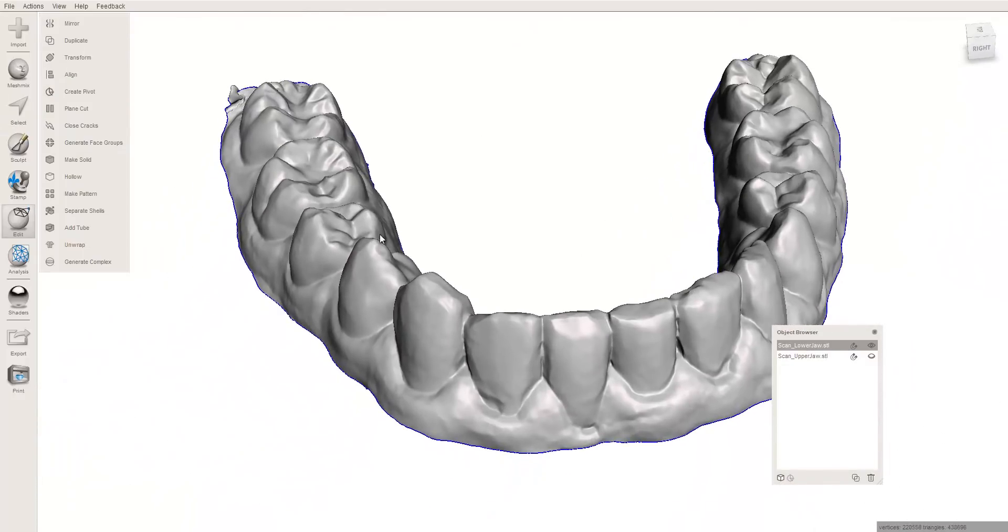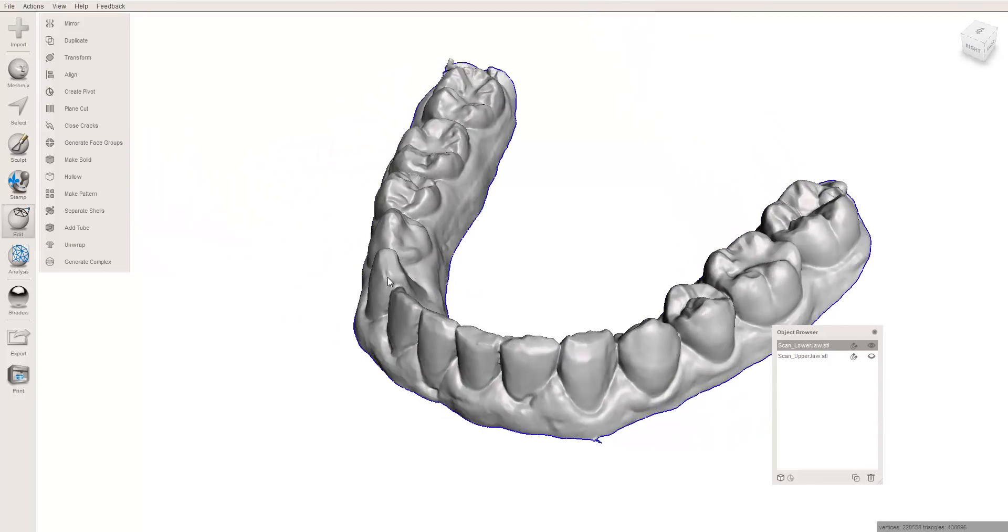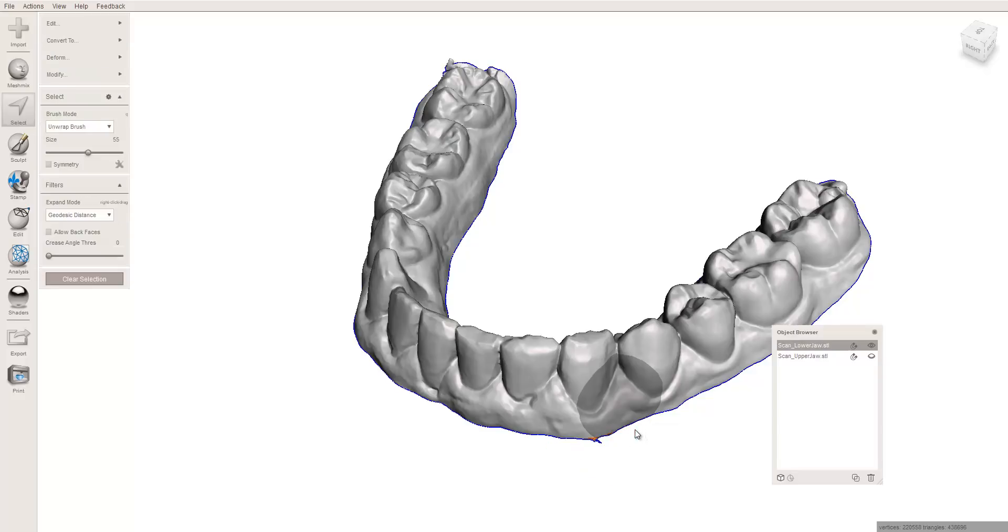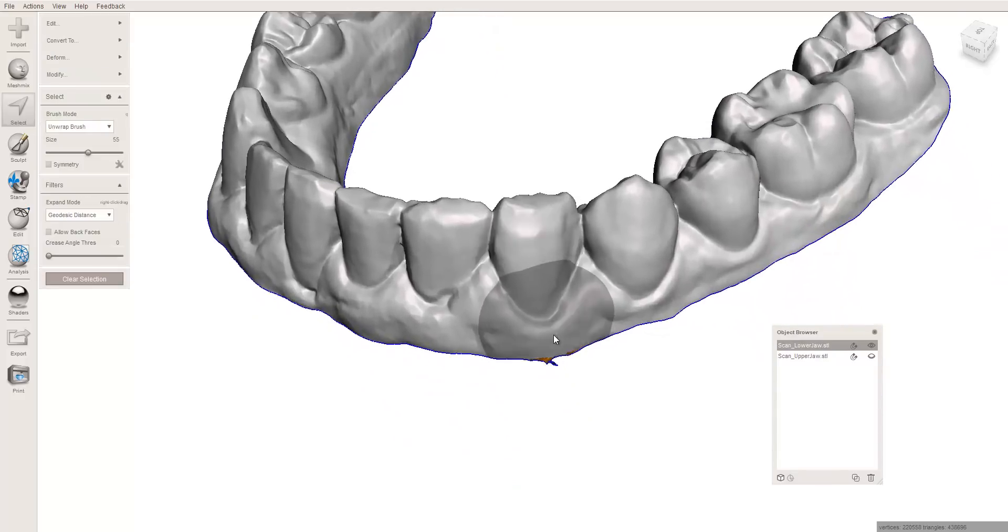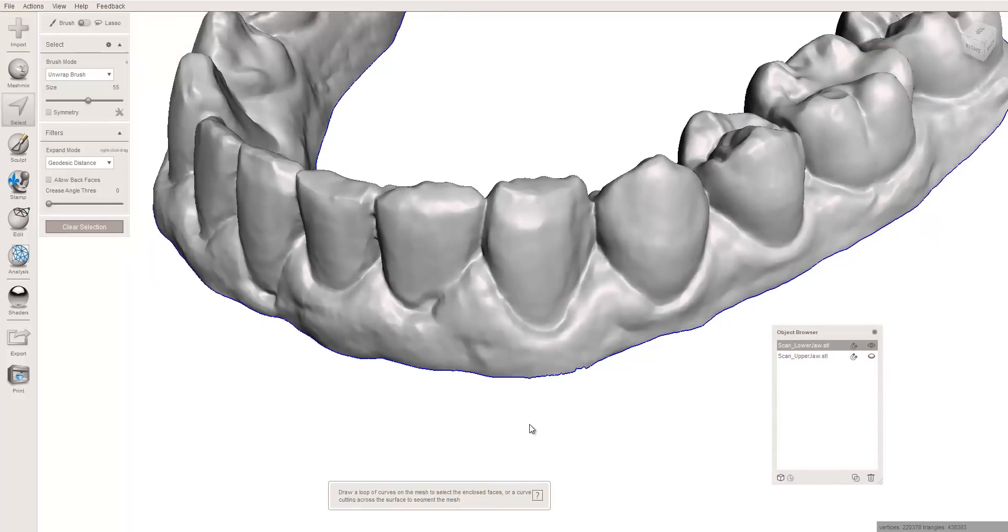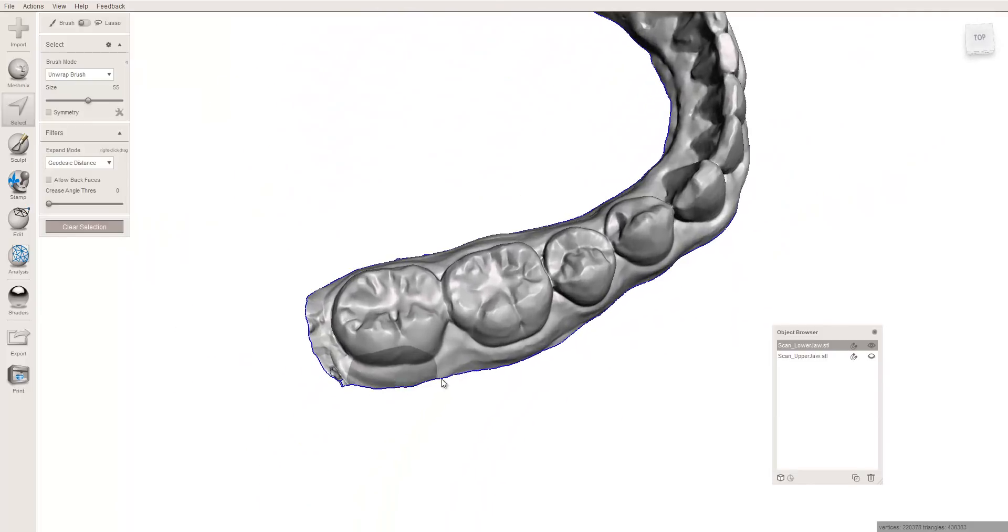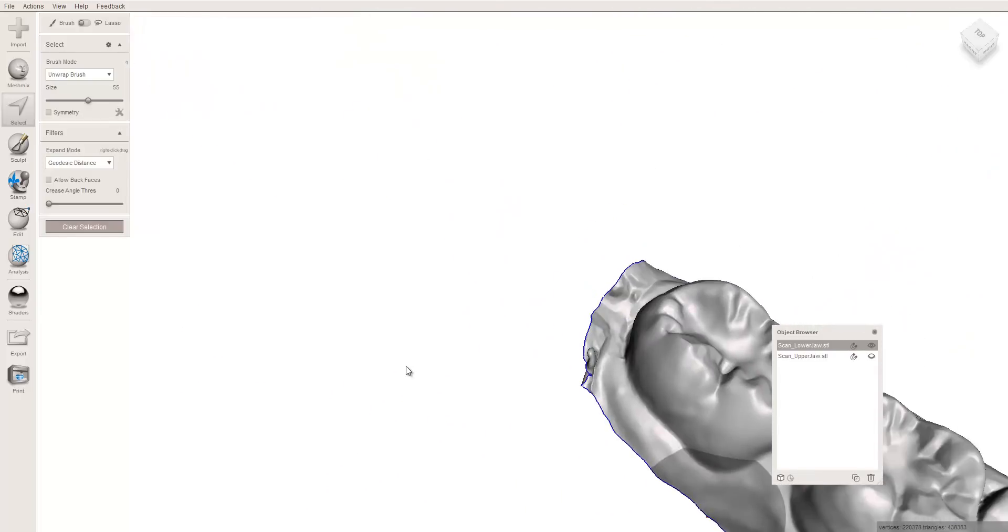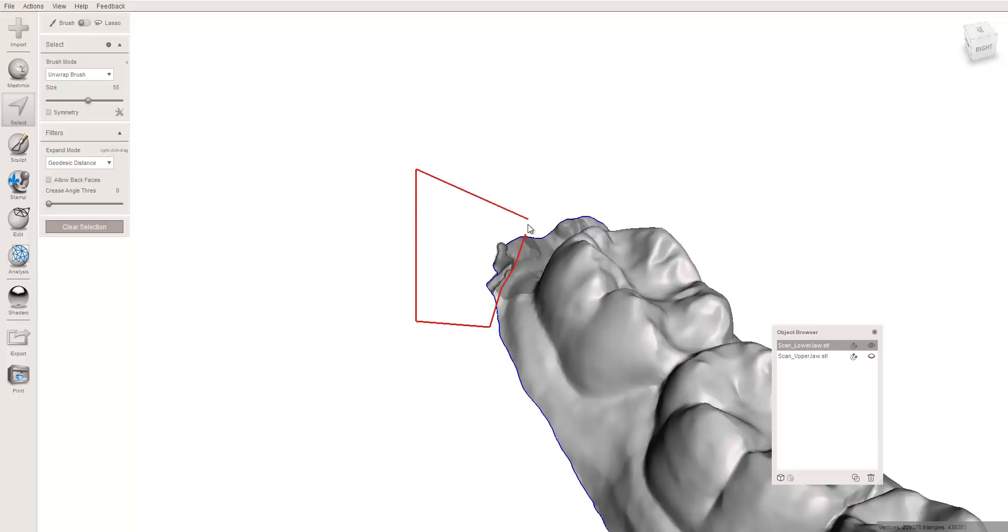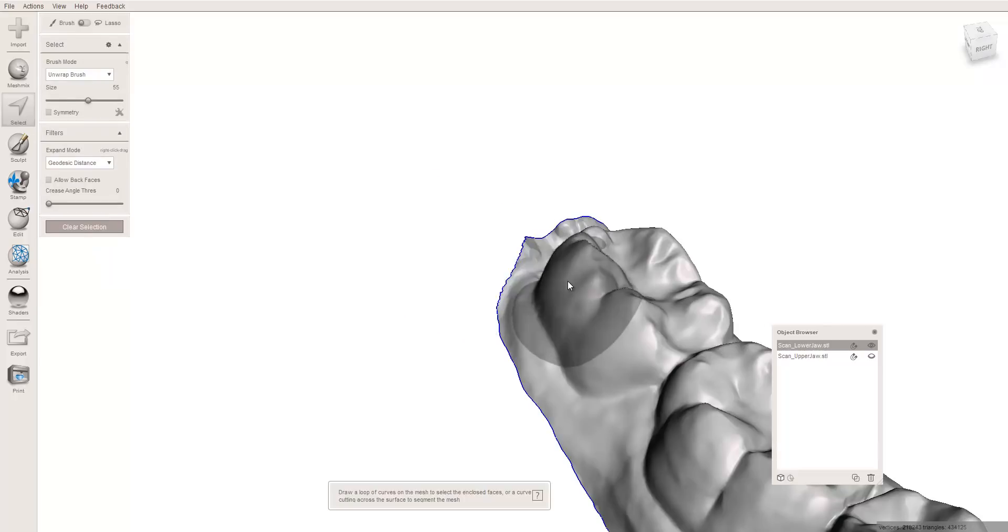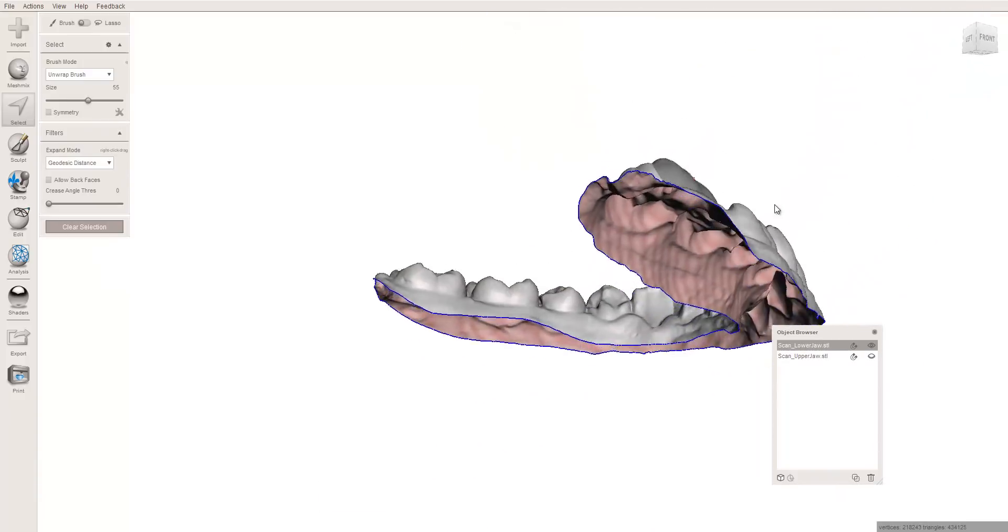It's not trimming everything. It's just trimming some of the extraneous stuff quickly for me, and in a case where you've got a lot of the floor of the mouth, it will really help. So I click accept. Now I'm going to go ahead and I'm going to trim the other areas that I don't like. Super simple. Hit the select button or just the S button. I stay off the model. Click once, twice, and I'm just inscribing the area I want to delete. If you look closely, it's now highlighted. Hit the delete button. It's now gone. On this model, there's really only one other area I need to do that on, and that's right here. I don't like positive surfaces that stick back up, if that makes sense.